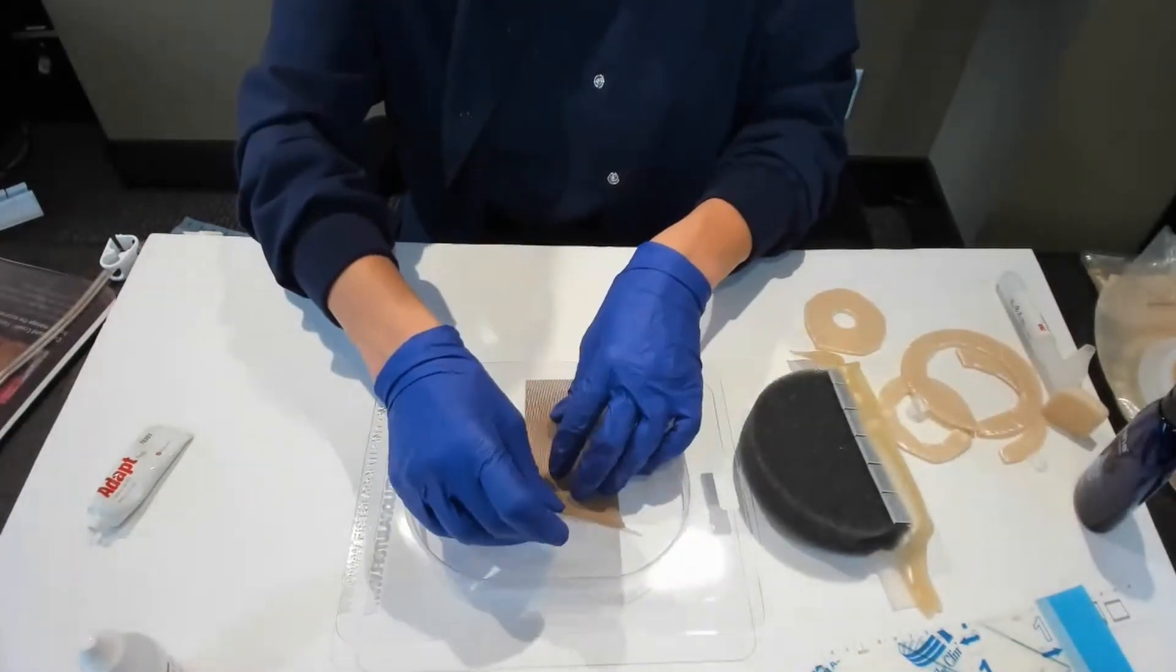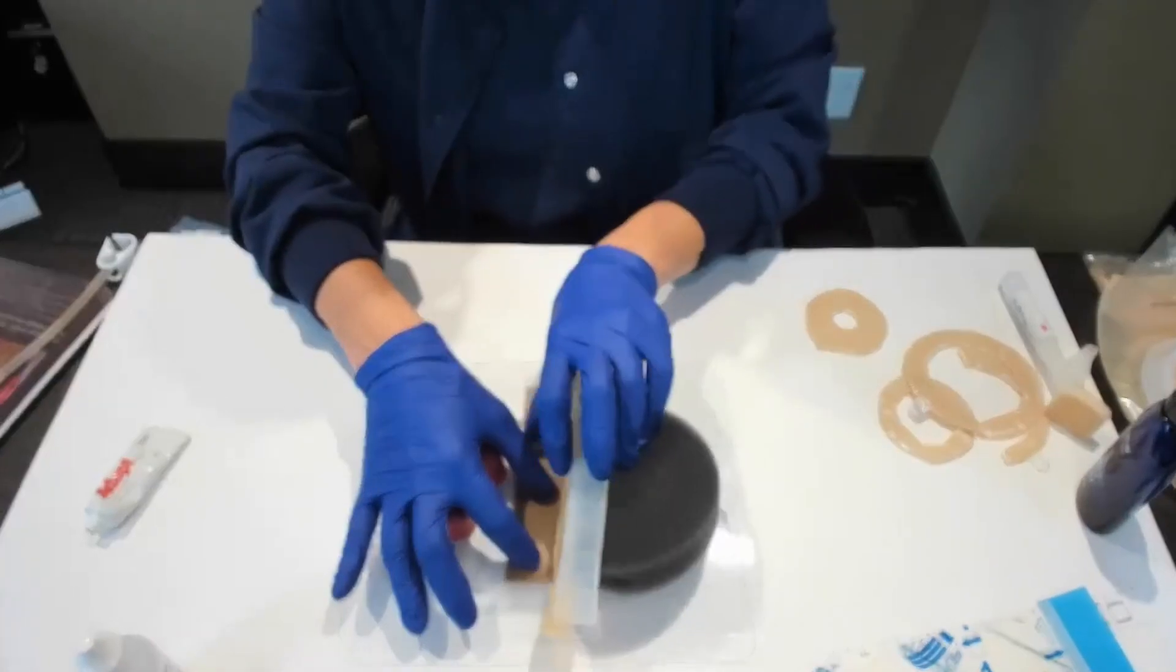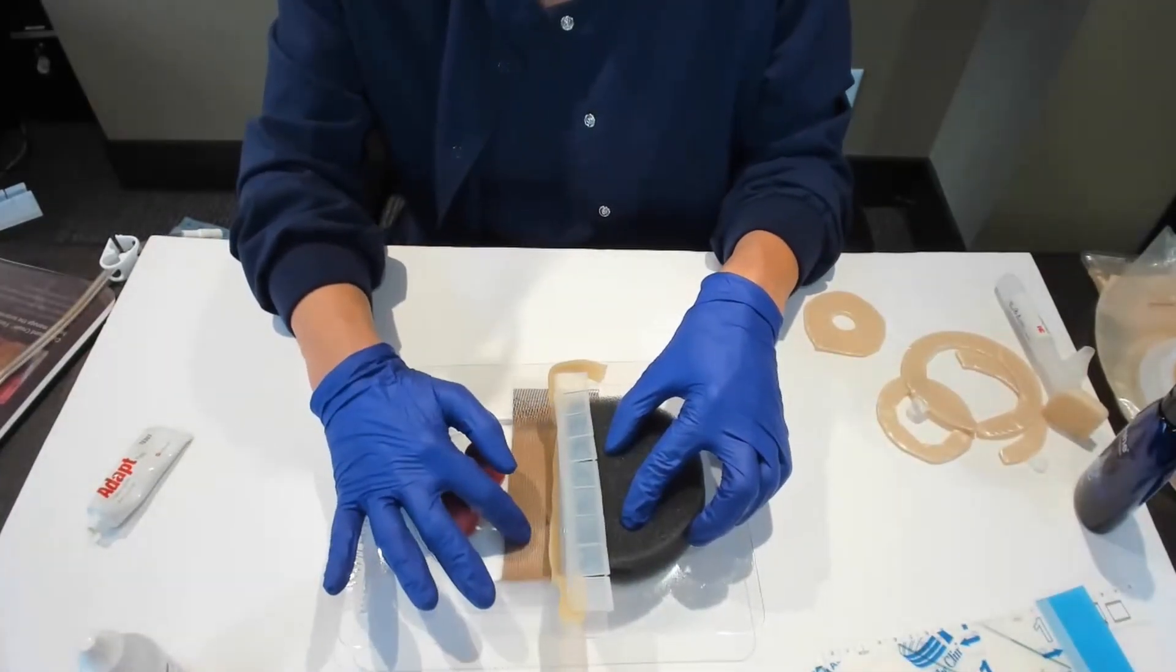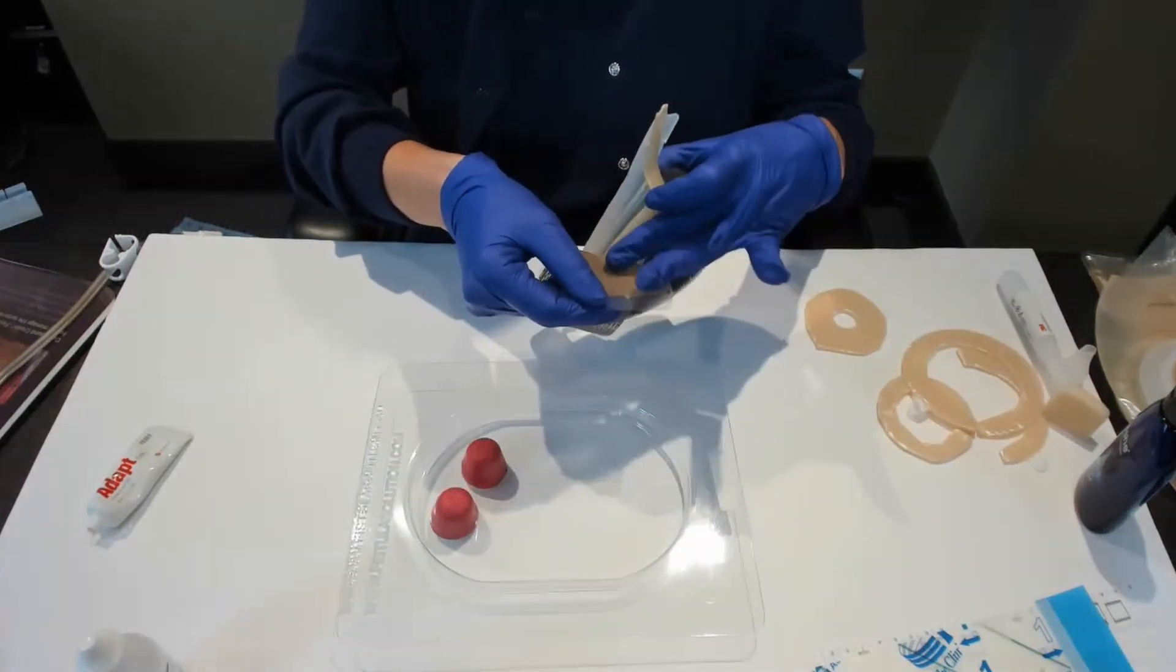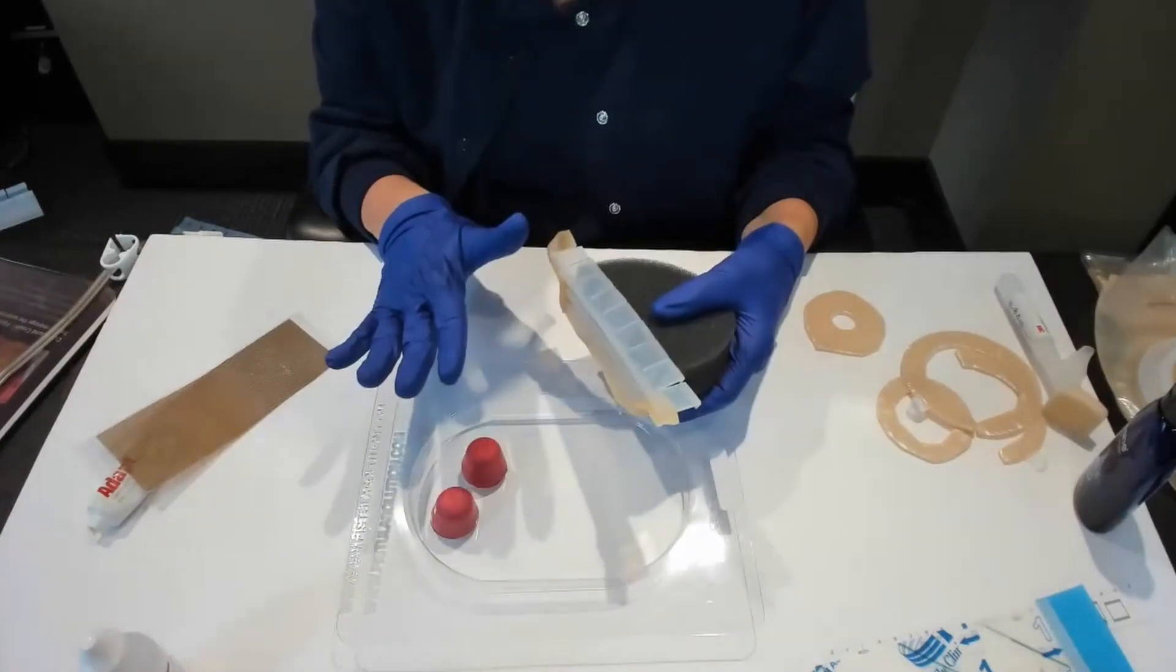I'll put it right here in the middle so that when I land this, you can see the non-adherent. It doesn't work very well in the tray because the tray is slippery, but in the real world, it works great.